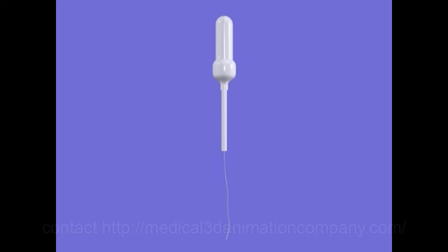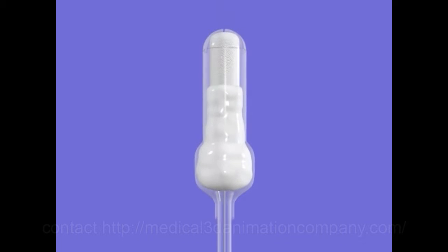The patented Feminova tampon looks very similar to other tampon products. Inside the applicator is a conventional style tampon.